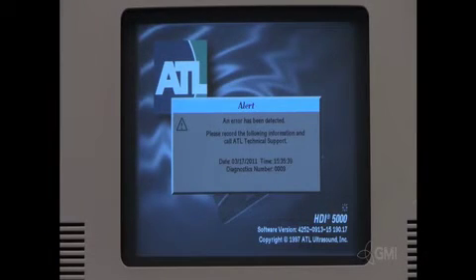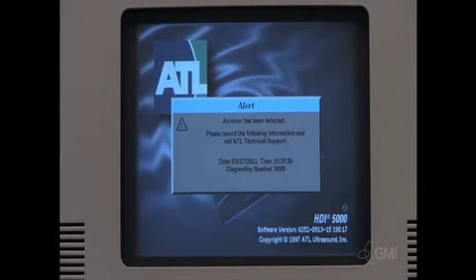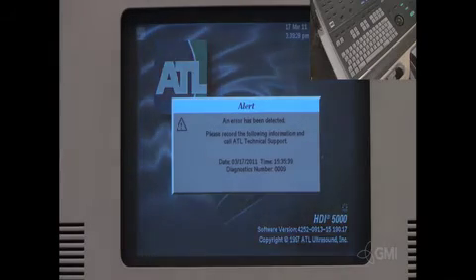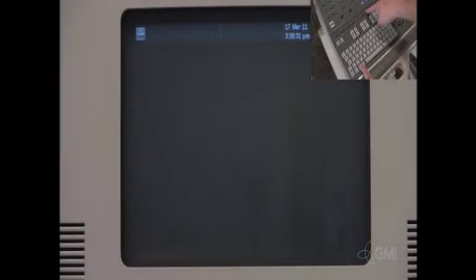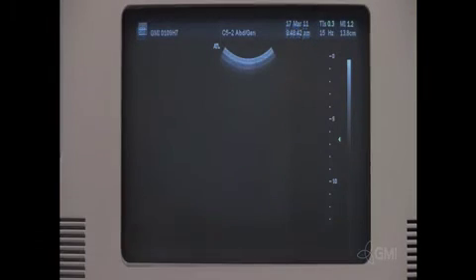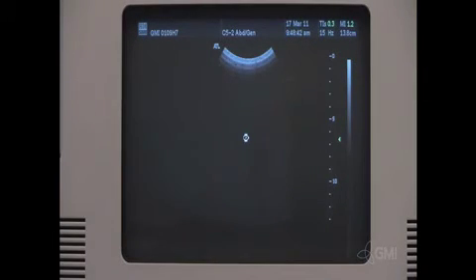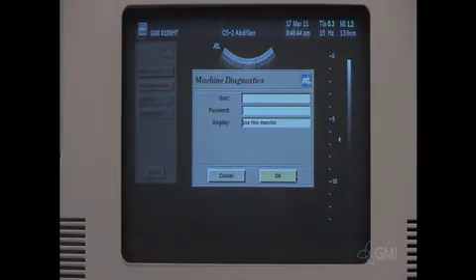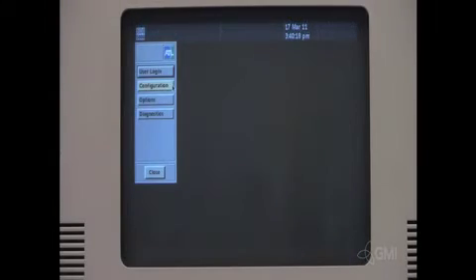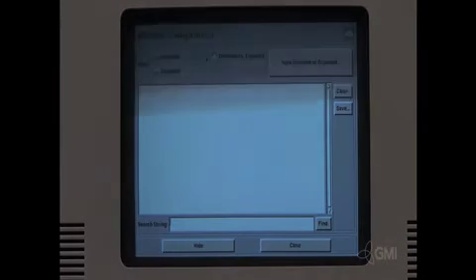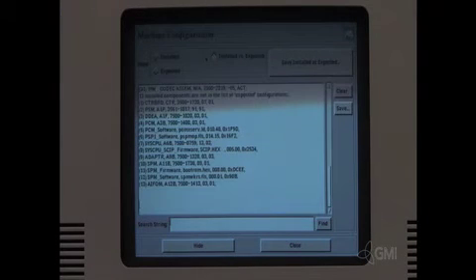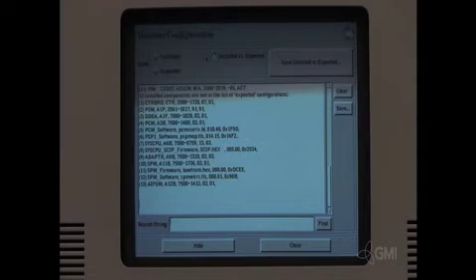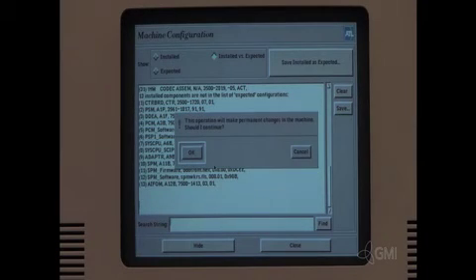You will receive a blue banner 09 message. This is due to a missing option file. Press and hold super key and press frame rate to clear the message. Press and hold super key and hit zero. Select configuration.